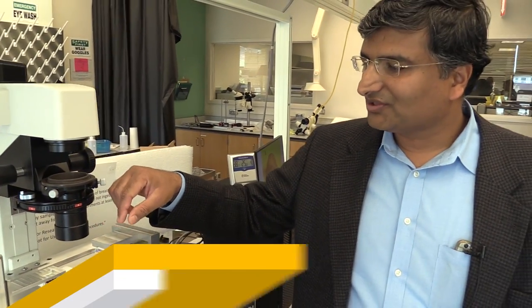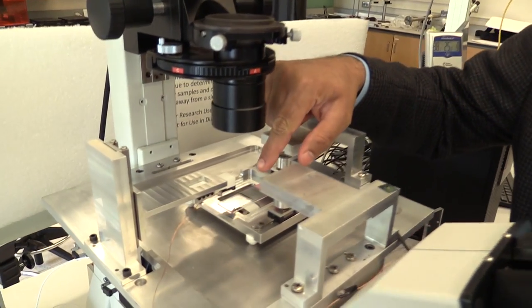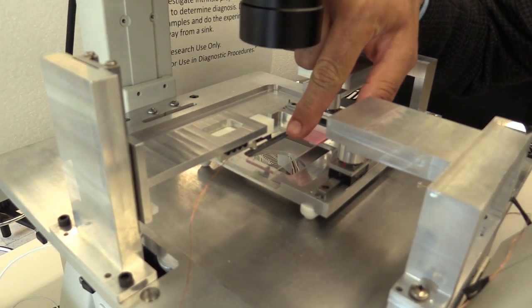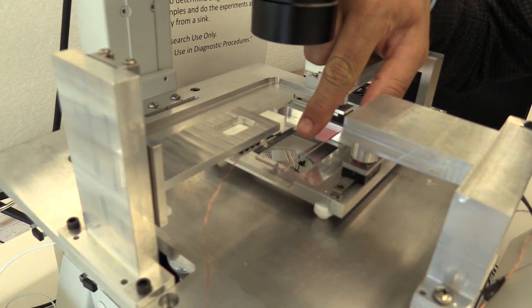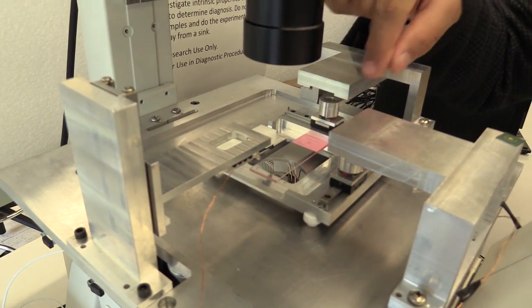Yes. So in this case, we are essentially trying to determine if there are changes in the breast tissue between normal and cancerous breast tissue. Here, for example, we have this small breast tissue core, and we want to figure out if there are changes in the electrical, mechanical properties of these breast tissues as they progress from normal to cancerous tissue.